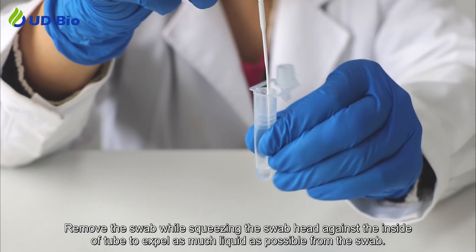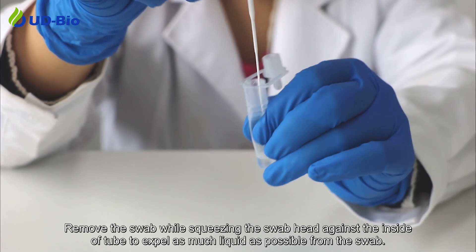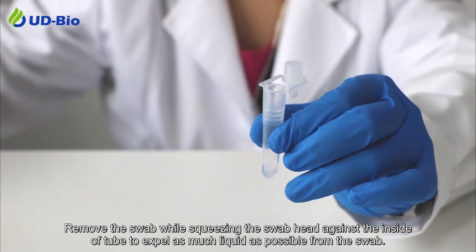Remove the swab while squeezing the swab head against the inside of the tube to expel as much liquid as possible from the swab.